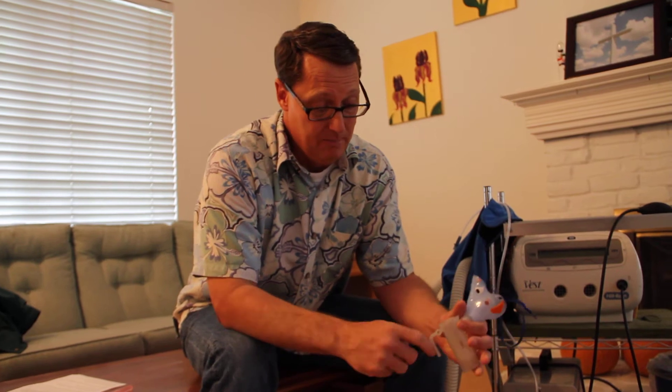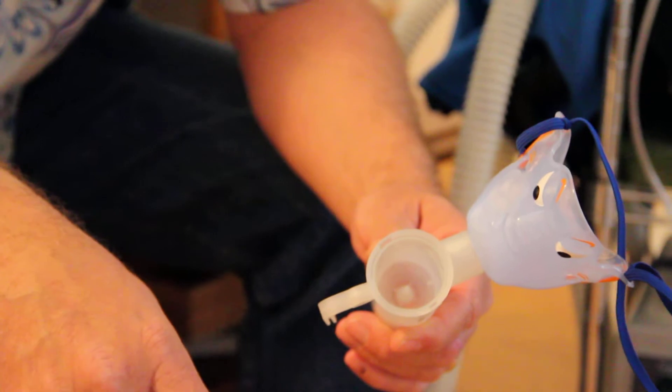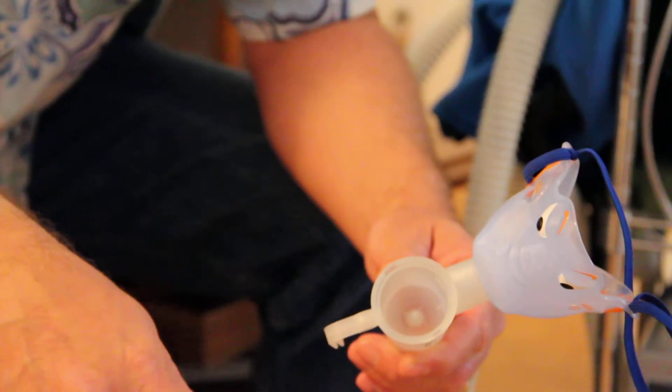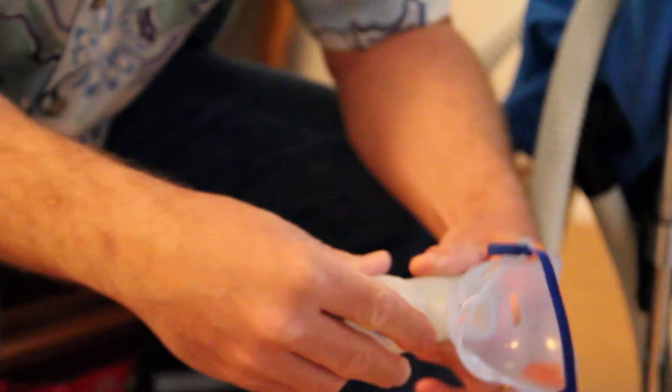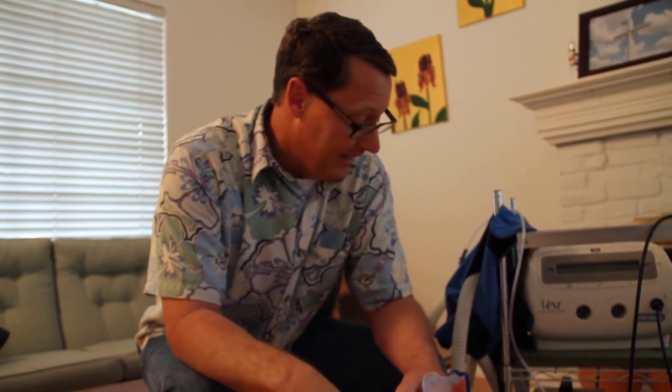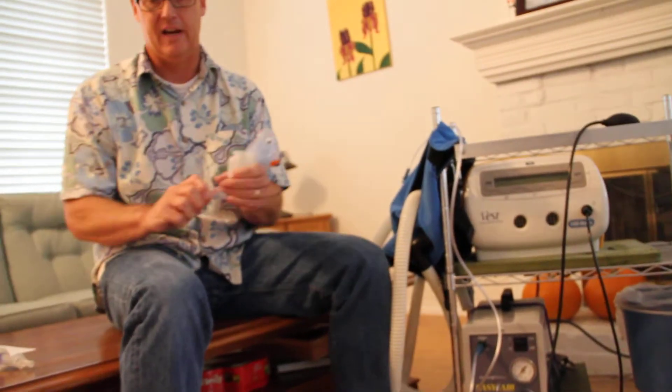Mechanically — I don't know if you can see this on camera — there's an orifice in the nebulizer and the air is getting pushed through that hole. If I add more liter flows per minute, it's going to come out faster. I believe there's an inverse relationship between PSI and liter flows per minute.